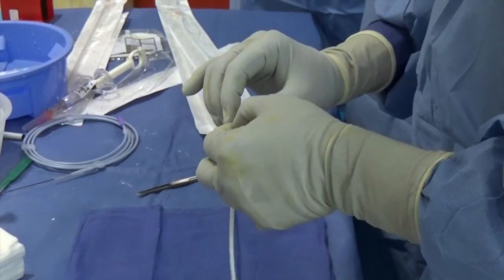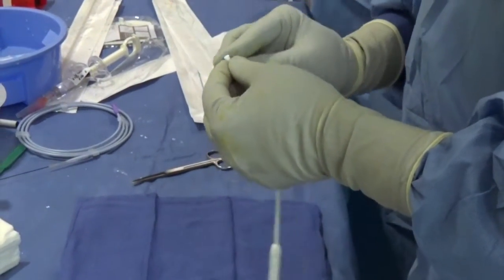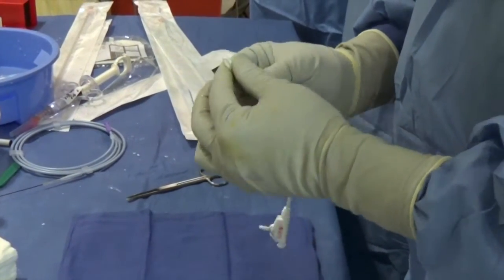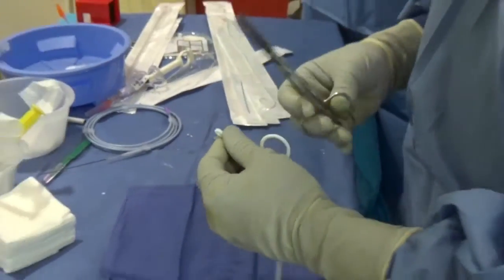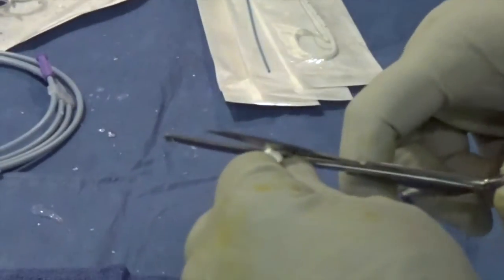So I'm going to take right where I want to go, I'm going to fold the catheter completely in half, like so. And then I'm going to cut just the corner off.